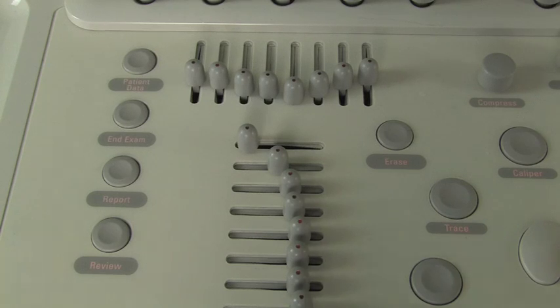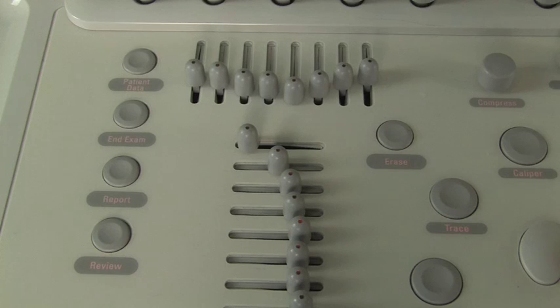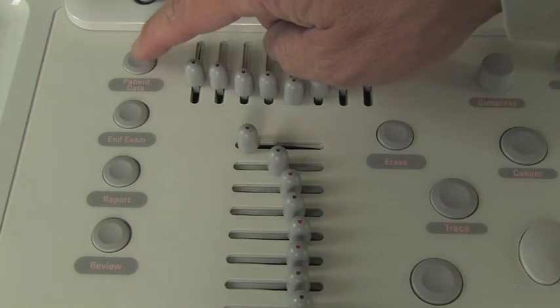On the left side of the keyboard we have review, report, end exam, and patient data. So if we're going to start an exam, we'll go ahead and hit patient data.